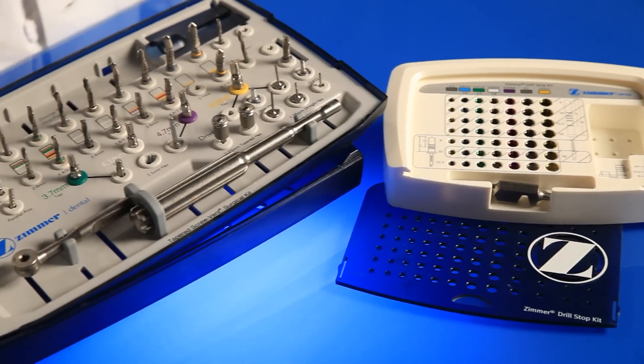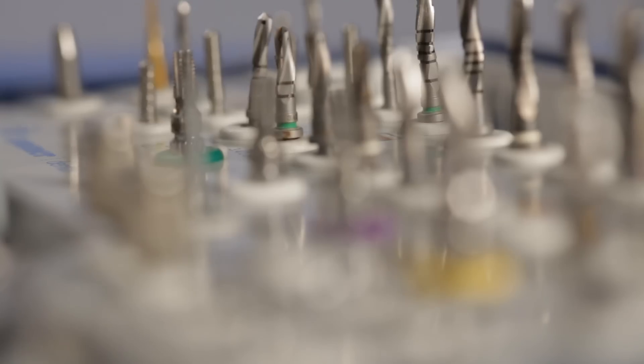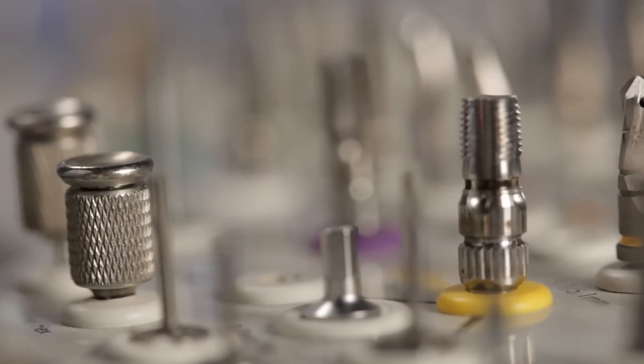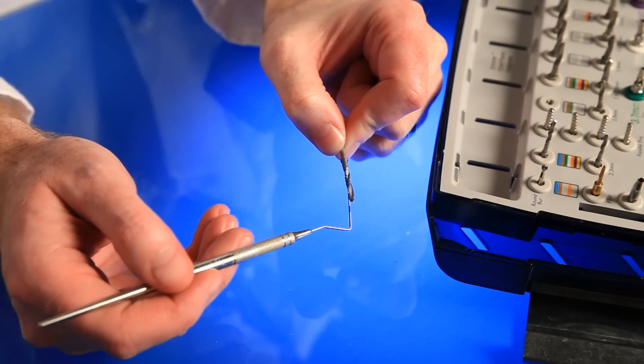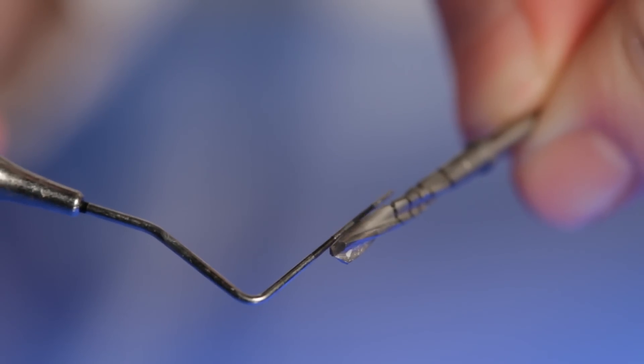A couple notes to make this kit more user-friendly. First, make sure you're careful about putting the sleeves back into the right spot. Second, double-check the exposed part of the drill and make sure that you have the intended length.